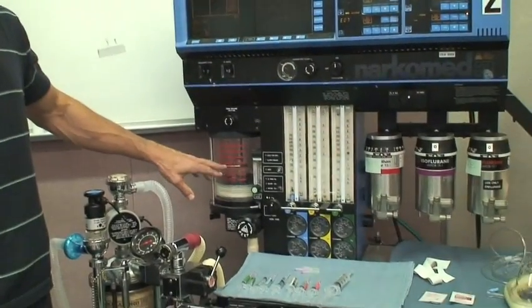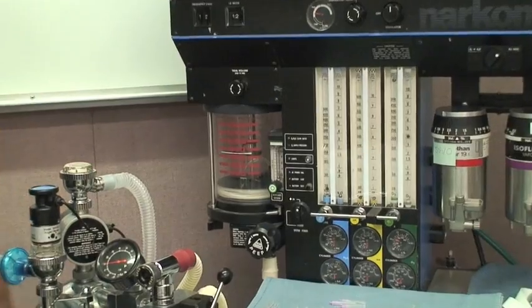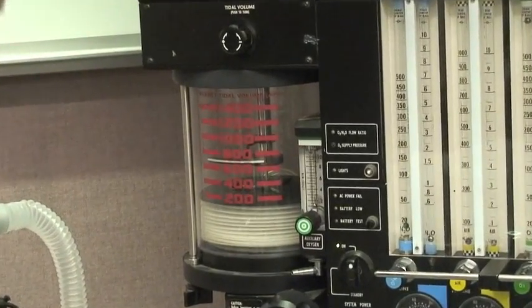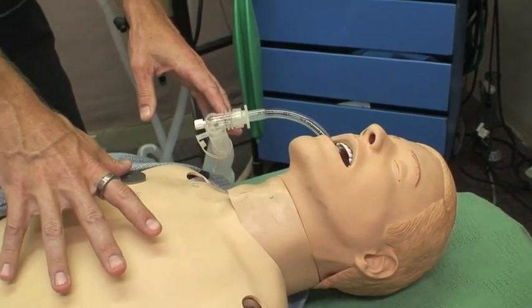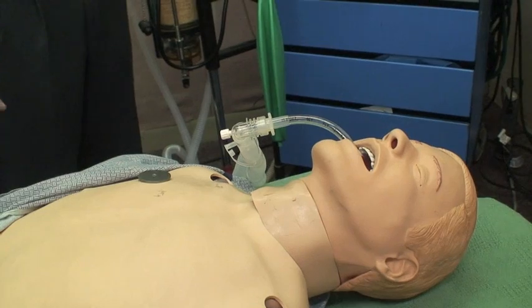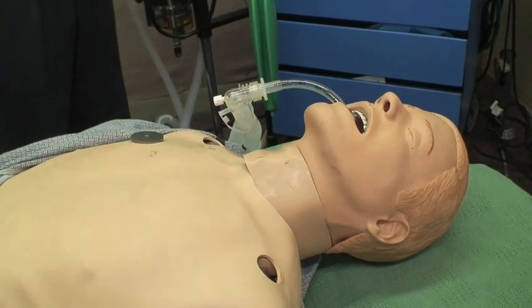We could also have something go wrong with the patient's physiology, and the student would need to figure that out — whether it's actually the patient having the issue and not the machine. You can see the bellows going up and down, which tells you how much volume is being delivered through the tube connected to the machine, down into the trachea, causing the lungs to expand. It's important for the anesthesiologist to track how much volume they're delivering — too much and you can overinflate the lung like a balloon; not enough and you won't deliver sufficient oxygen.